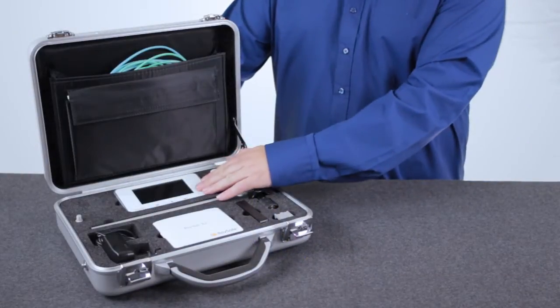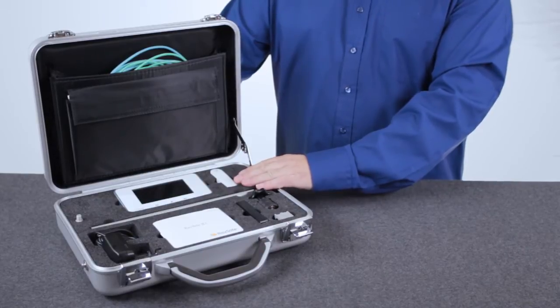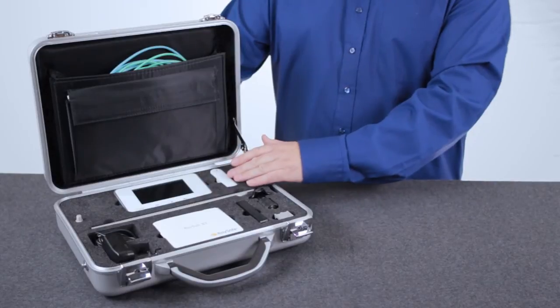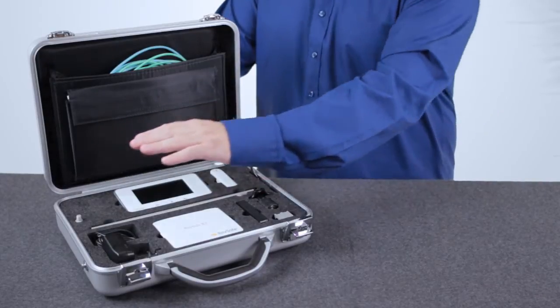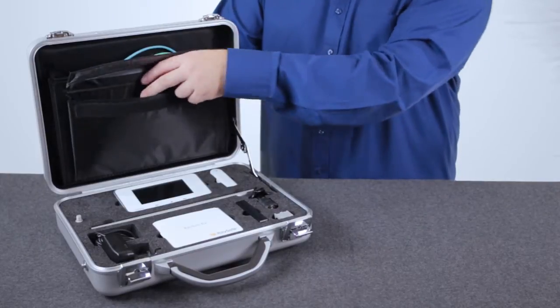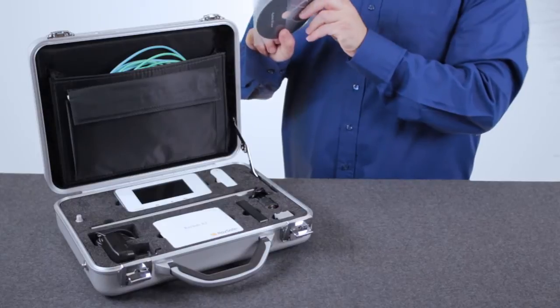The system consists of a base unit, an x-ray sensor to be placed in the x-ray field, a flexi stand to help positioning the sensor, power adapter, cables, and the X2View software to be installed on a PC.